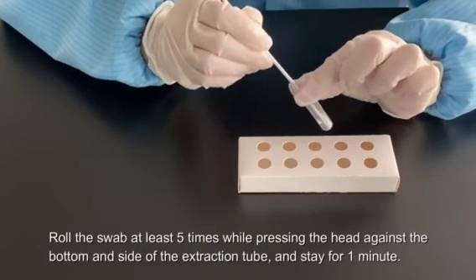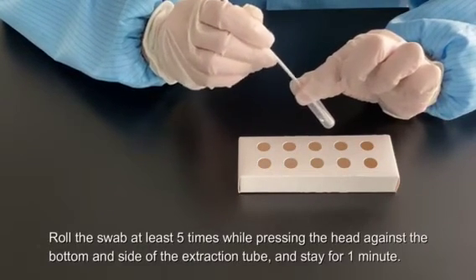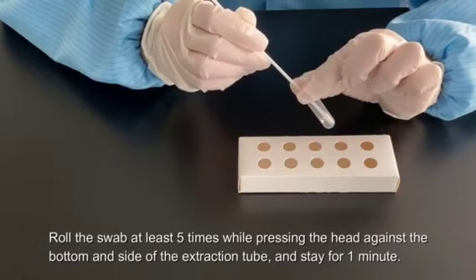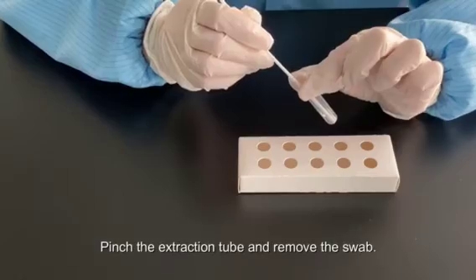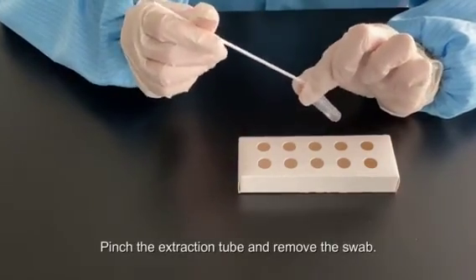Roll the swab at least 5 times while pressing the head against the bottom and side of the extraction tube, and stay for 1 minute. Pinch the extraction tube and remove the swab.